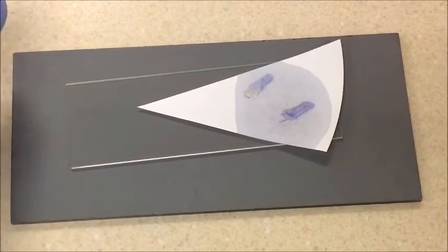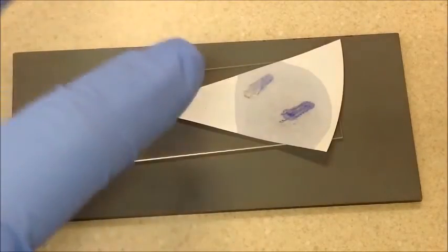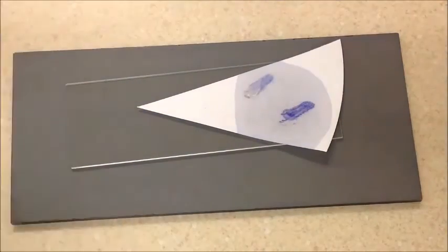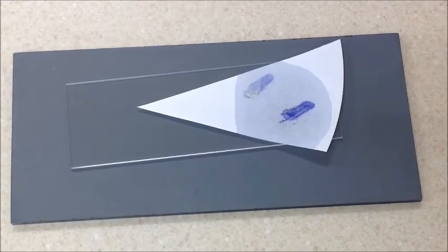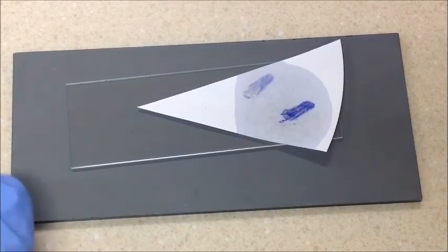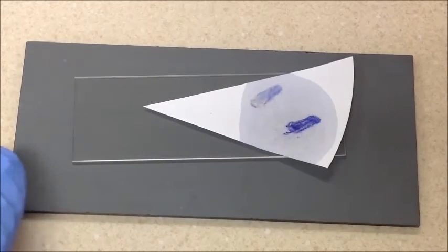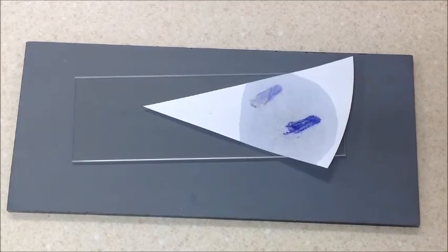Even within the first five seconds it's turning up positive. Now on the top, the Klebsiella - you can see how as I let it sit longer, it does eventually turn blue. That's why it's important to make the decision about whether it's positive or negative within that 20-second time frame.